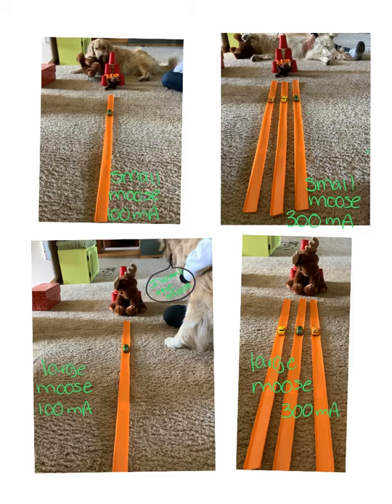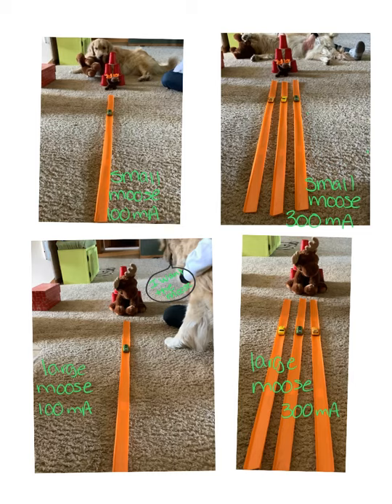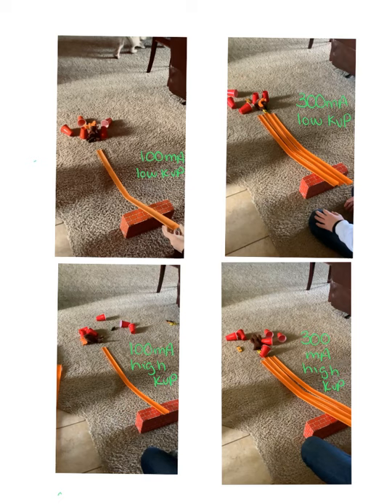Here you see the different scenarios we're going to be running through: a small moose using 100 mA, a small moose using 300 mA, a large moose using 100 mA, and a large moose using 300 mA.